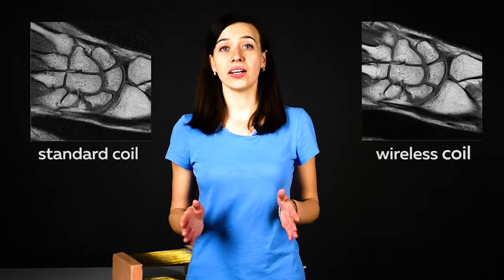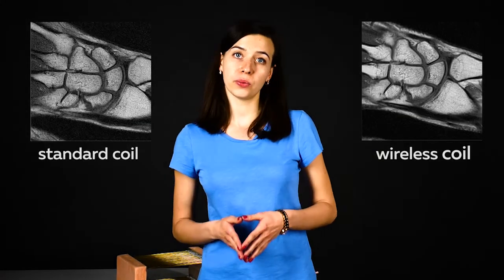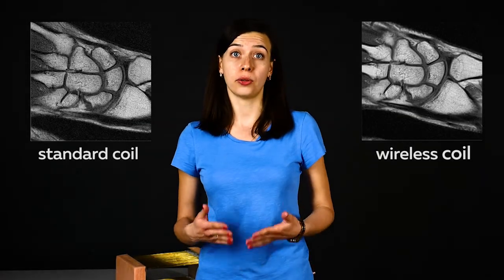To conclude, our approach allows you to obtain high quality images which is comparable with ones obtained on a standard commercial expensive local coils.